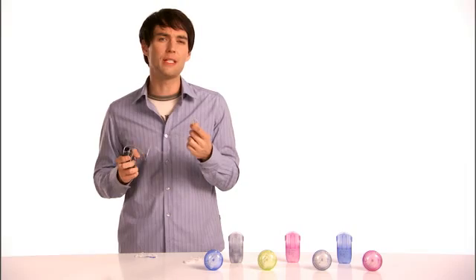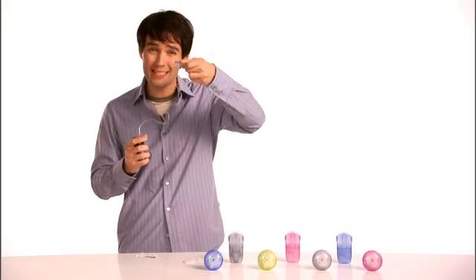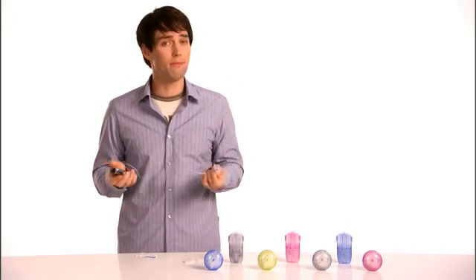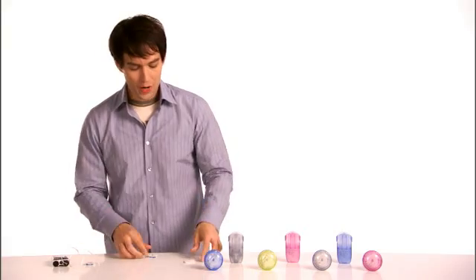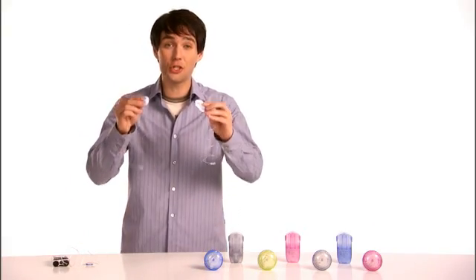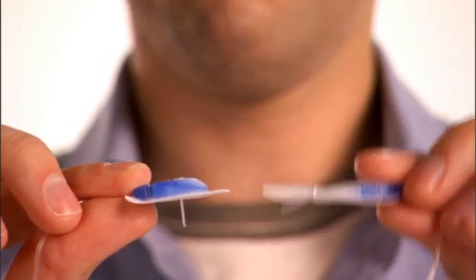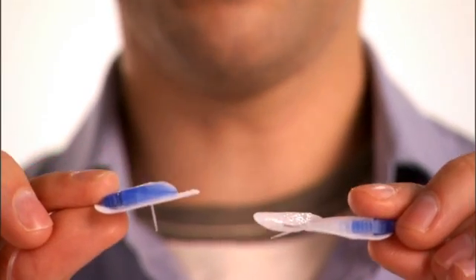Now this particular infusion set is called Inset. It's a straight set. There's also Inset 30. It's angled. Straight and angled refer to how it enters your skin. See? Straight, angled. Which one you like better is really a matter of personal preference.